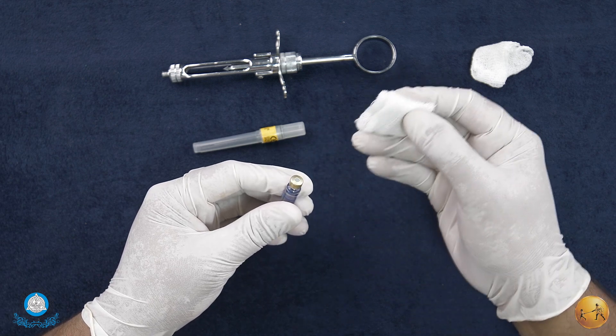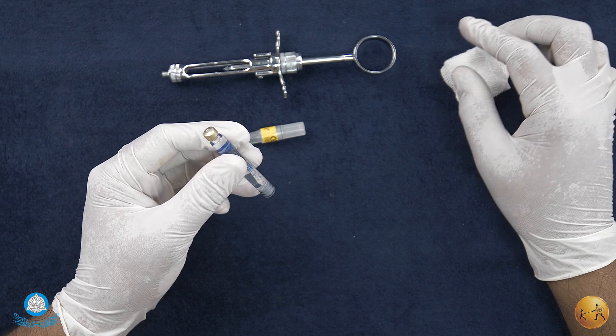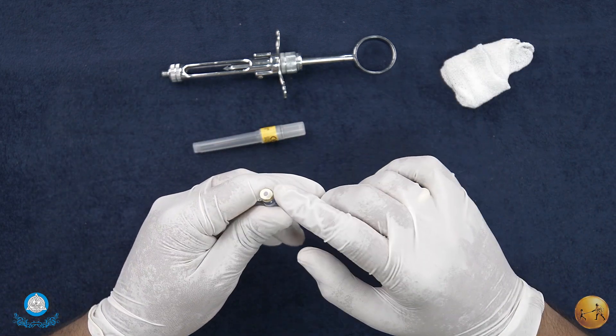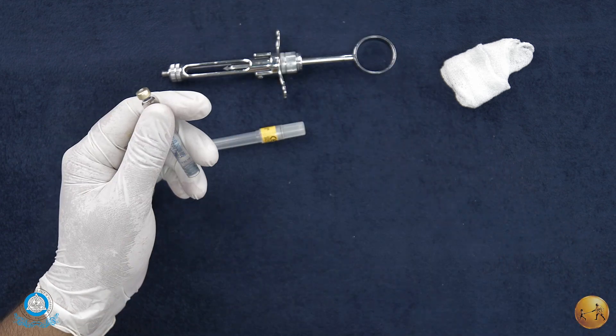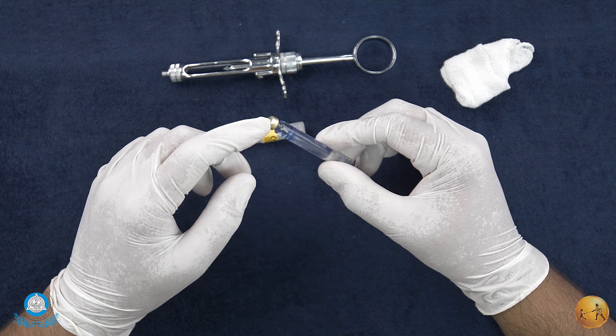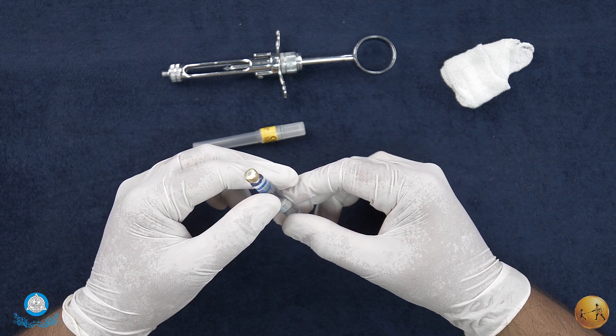Then let it dry and only then load it in. Why do you have to let it dry? Because if you do not and you directly load it in, the contents may get contaminated by the disinfectant, which will further cause a burning sensation.